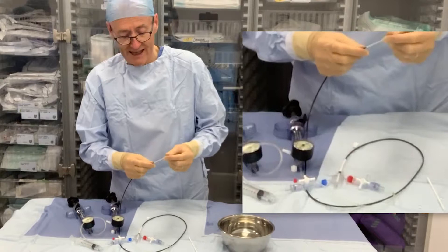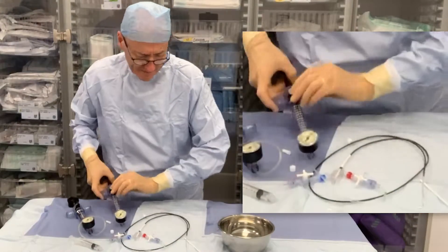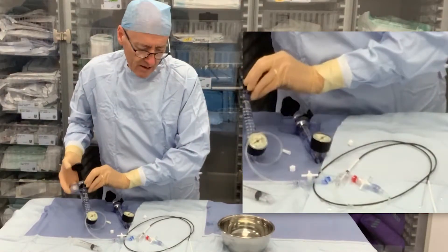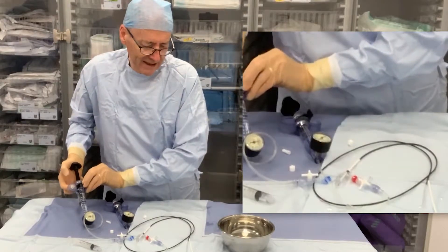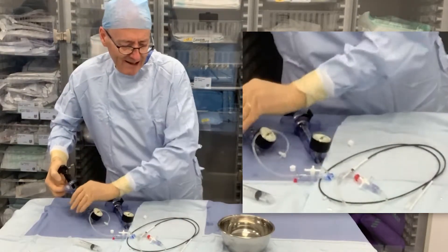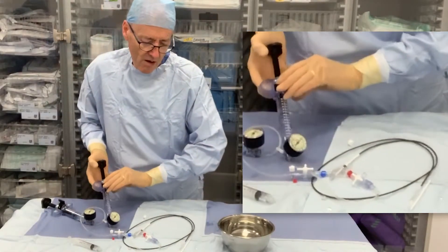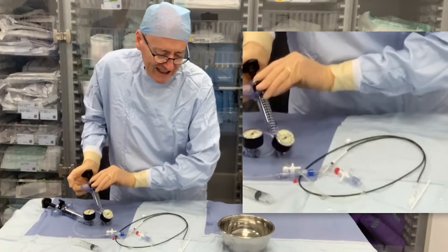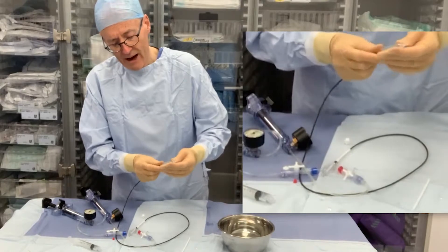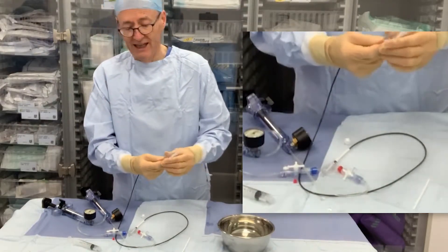The positive prep is an easier prep. I can illustrate that now. So we can start with the inner balloon — you can see it moving up. And then the outer balloon. You get to see by doing a positive prep that your negative prep really wasn't so bad. There aren't any huge bubbles in this balloon.